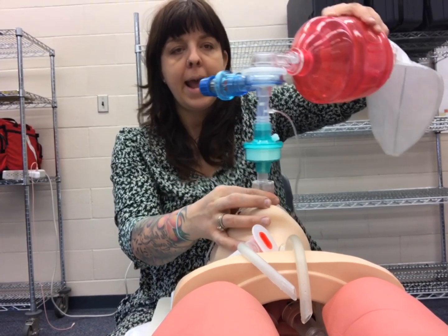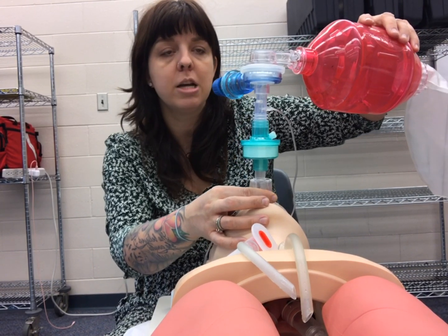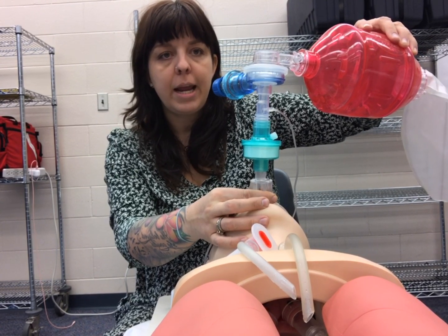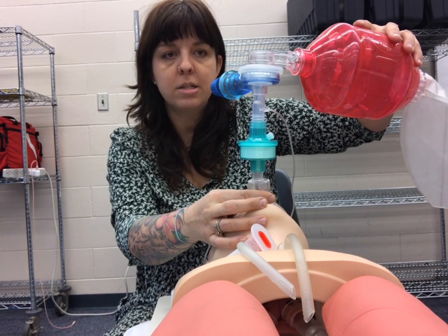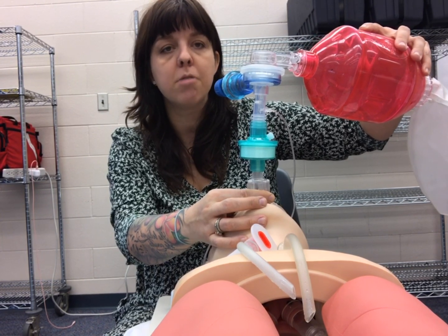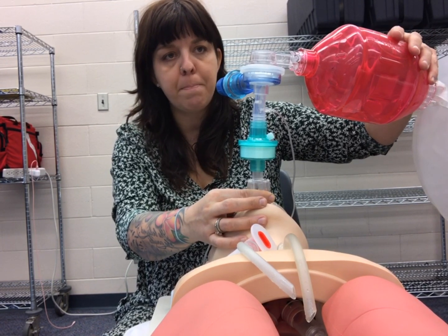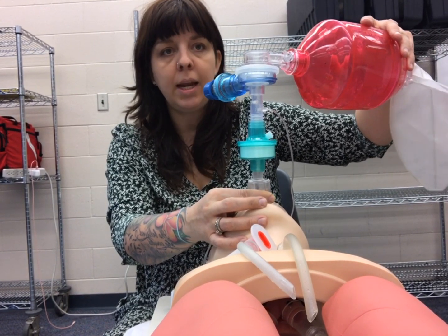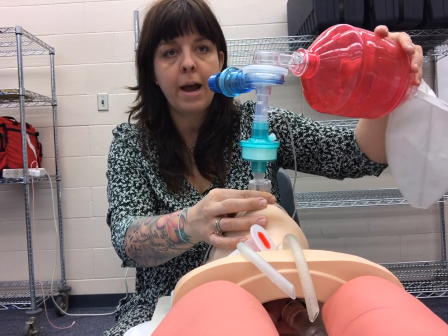The i-gel has an integral black line beneath the size marking — that should sit at the teeth. If not, go one size smaller or push it further. Once inserted, immediately hold it in place. Give a ventilation and ask your partner: any gurgling? No — wonderful. Confirm placement: left apex, right apex, left base, right base. You should see chest rise and hear bilateral breath sounds. Your first five breaths are confirmation breaths — be organized, because you're breathing for someone.